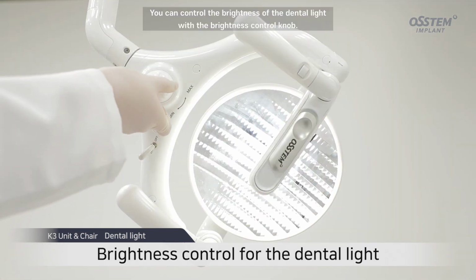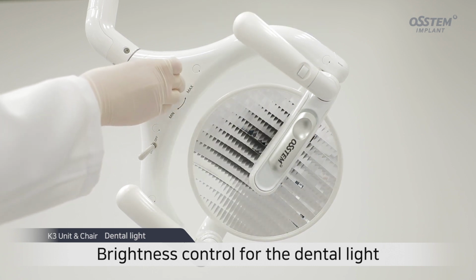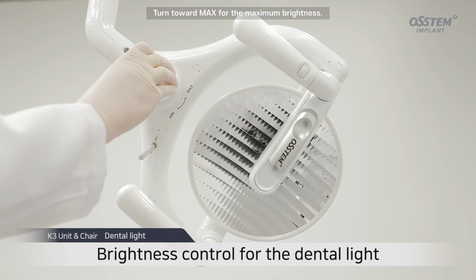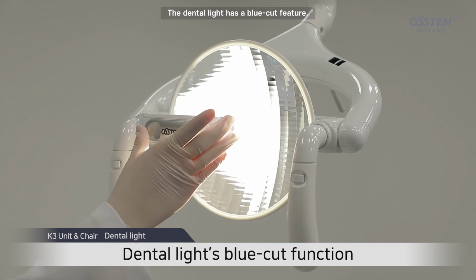You can control the brightness of the dental light with the brightness control knob. Turn toward max for the maximum brightness. The dental light has a blue cut feature.